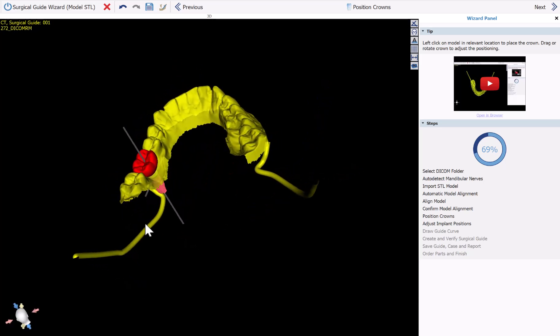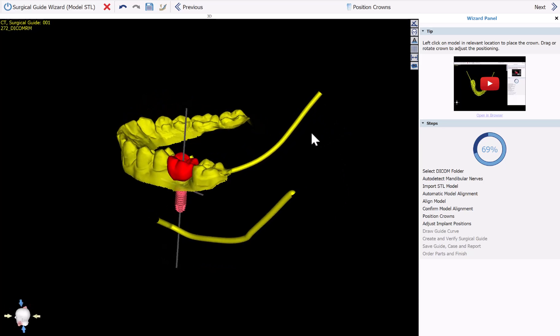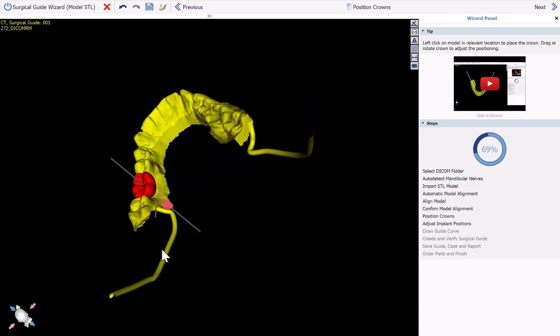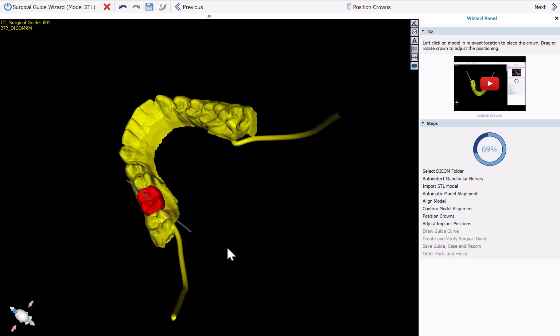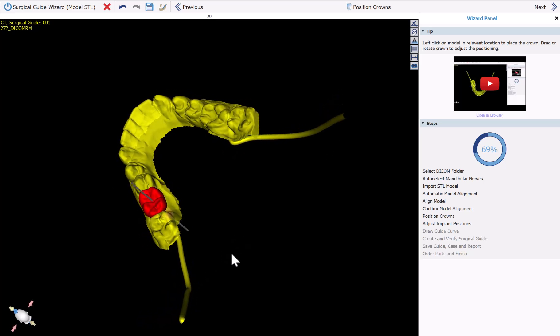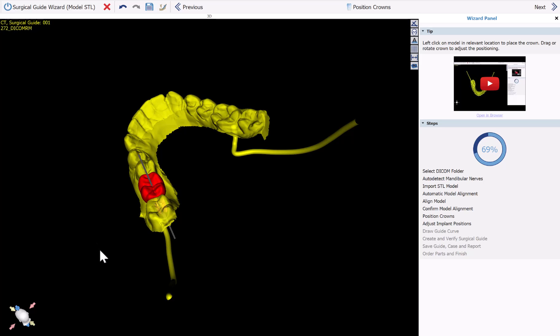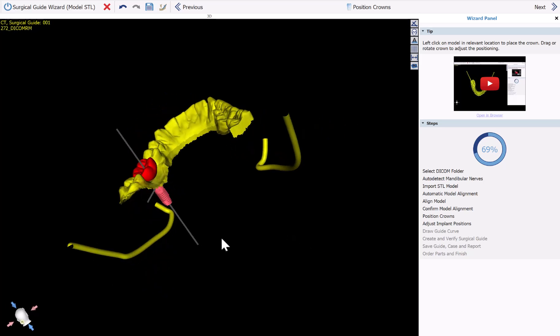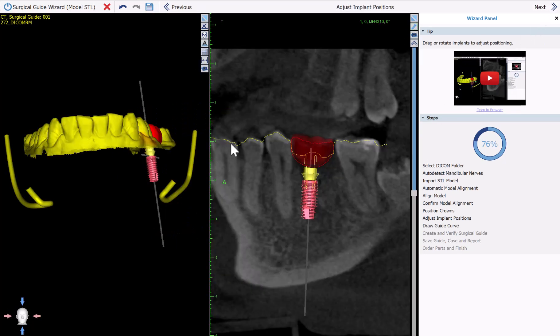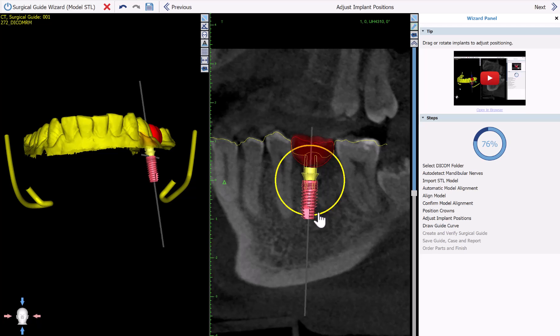As we can see, the tooth has been automatically generated and the implant and abutment have been placed. This is our first iteration of the automatic tooth design. If you have any problematic cases, please send them to plan@blueskybio.com so we can continue to improve the machine learning and AI automation. Now I'm going to click Next. We can confirm the implant placement — if any modification is necessary, just grab and drag the implant with your left mouse button. You can change the tilt by grabbing the circle and adjusting accordingly.